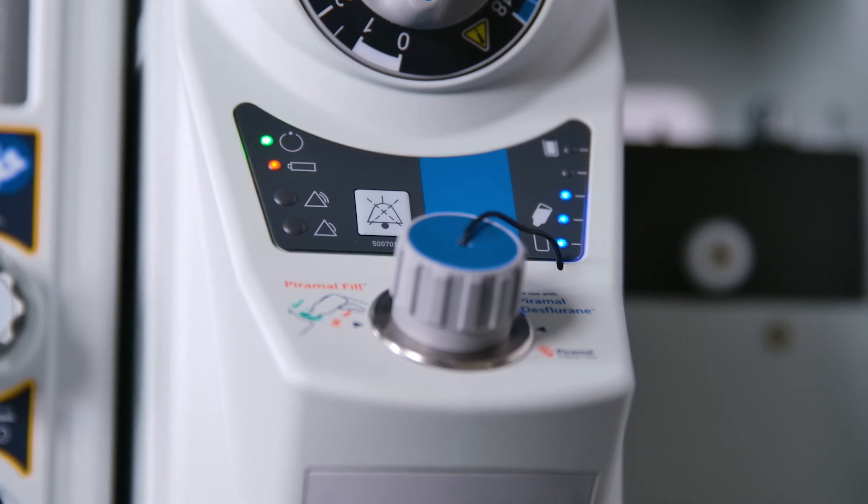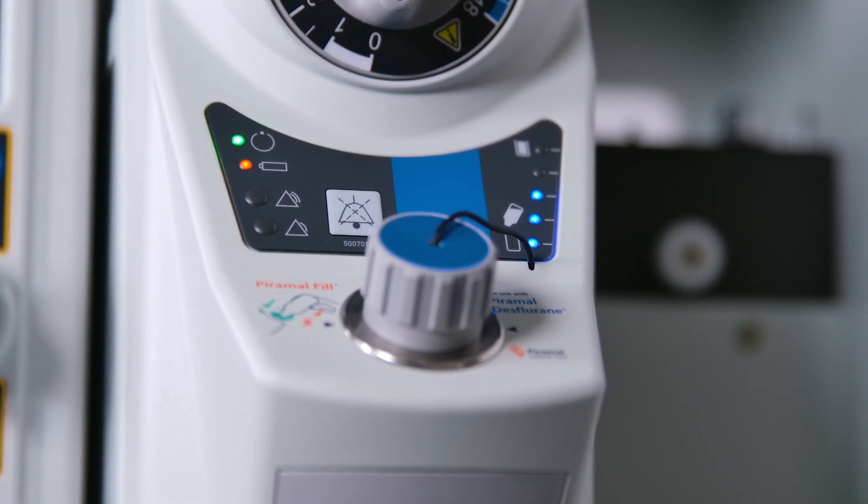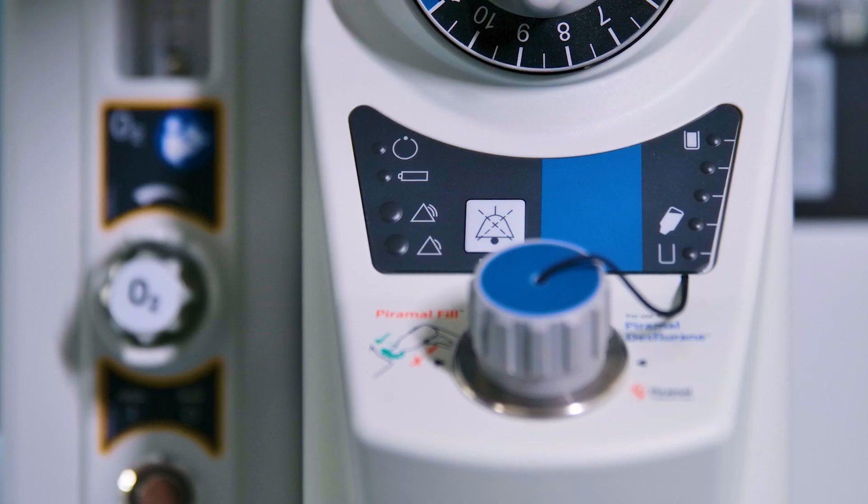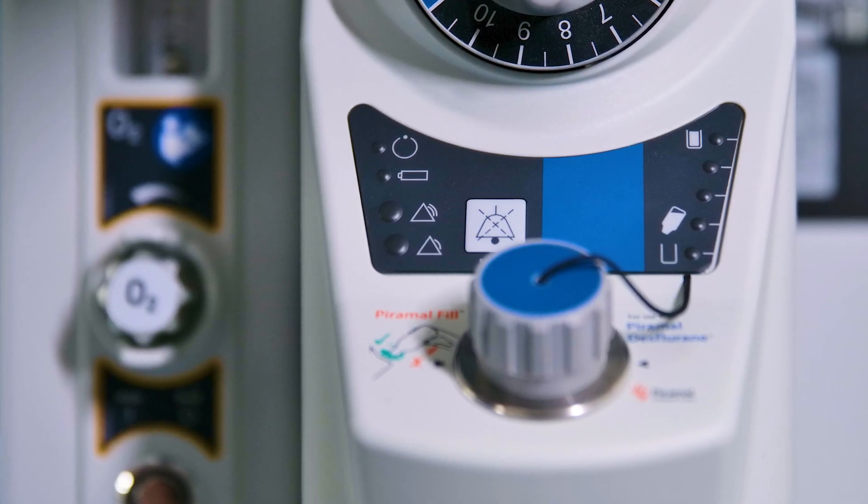Indicators will flash, accompanied by a repeated sequence of three tones. Indicators will continue to flash until all internal systems have powered down.